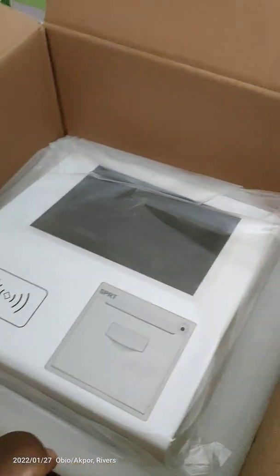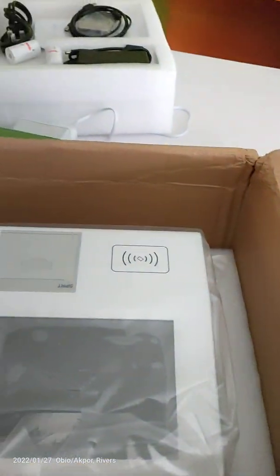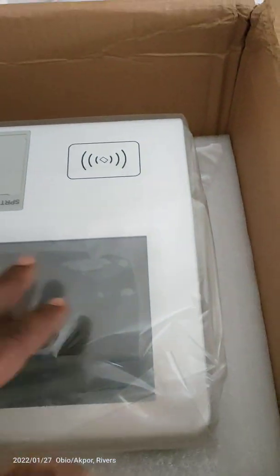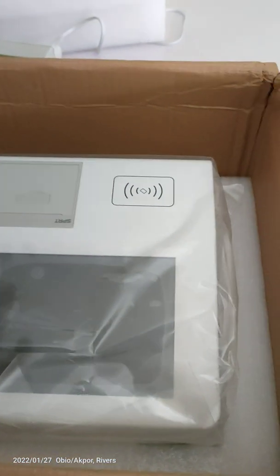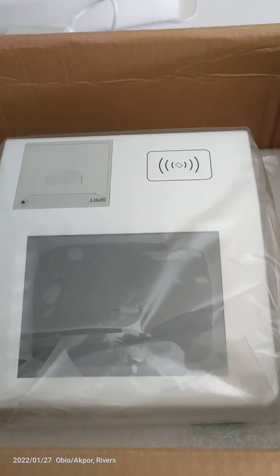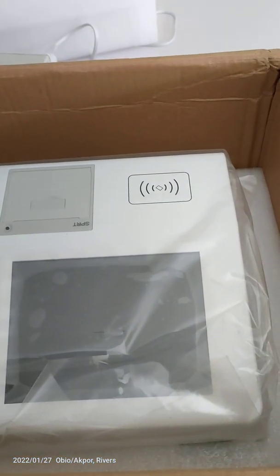Okay, so this is the machine. I'm going to open the machine, power it on, and do QC testing and cover it in this video, and then send it to you after this video.